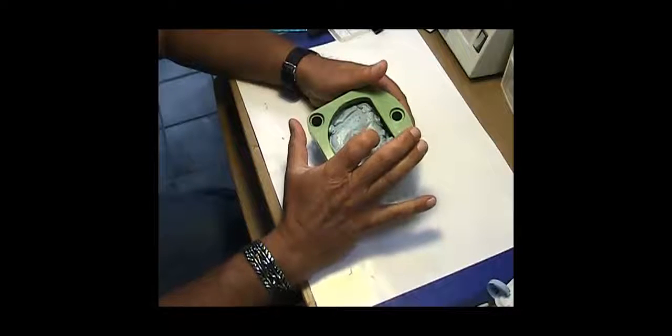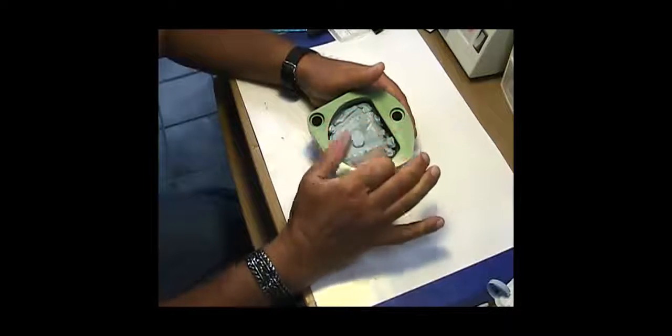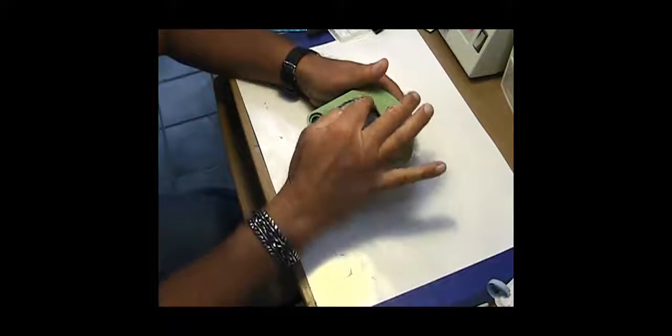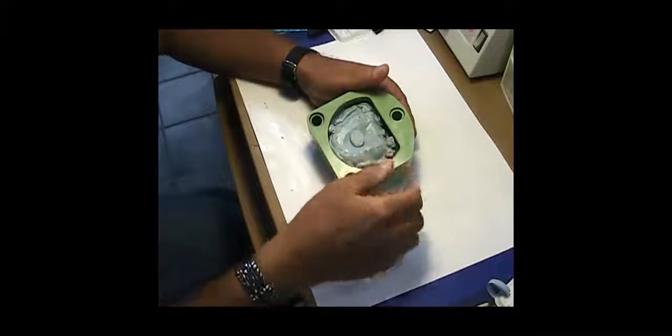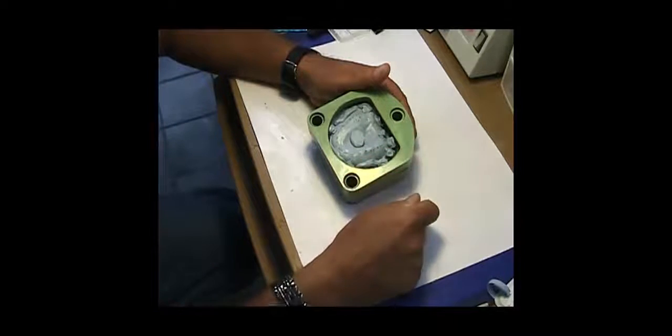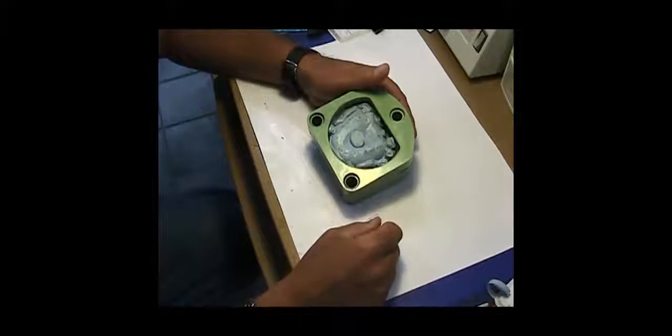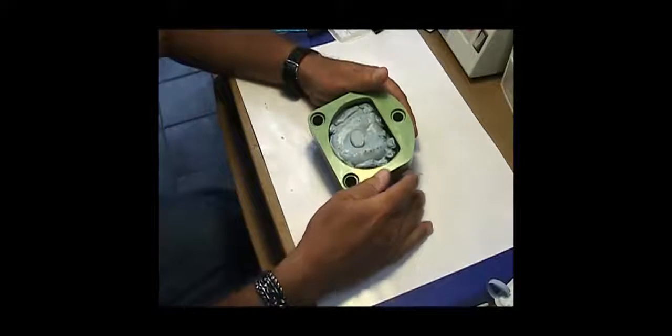There are bolts that hold the cap on, and you pour these molds through the top of the cap where there's two holes. I want to ensure I get enough stone all the way around, so I'll pour a little stone before I put the cap on.